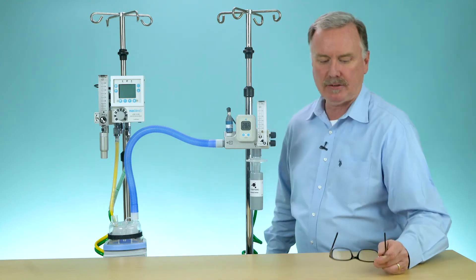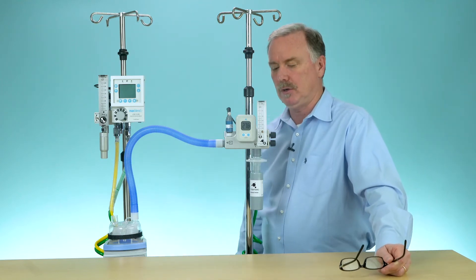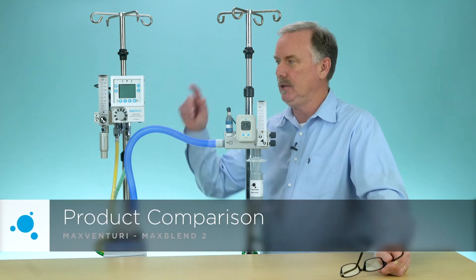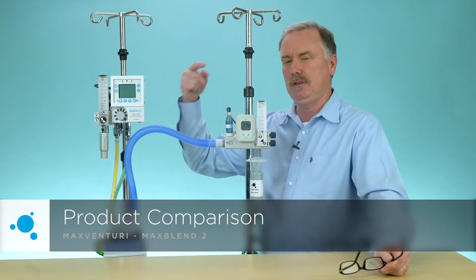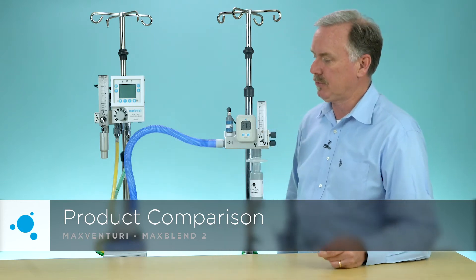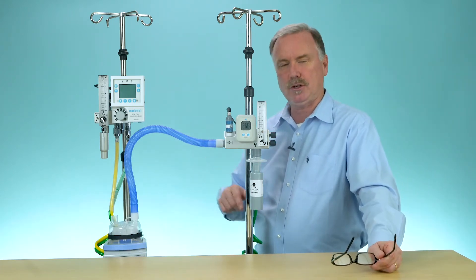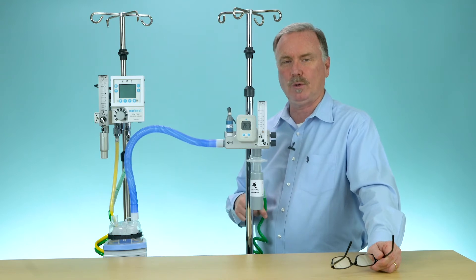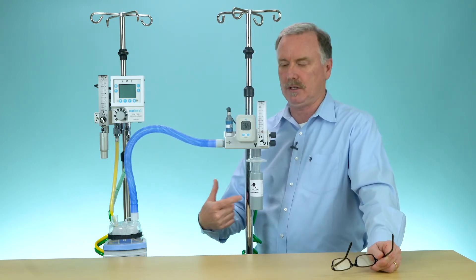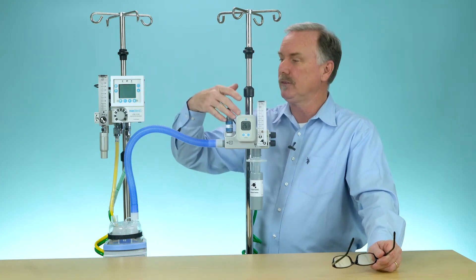Hello, this is Brian from Max Tech, and this is another Minute with Max Tech. Today I want to talk about the primary differences between the Max Blend 2 and the Max Venturi when trying to deliver high flow to your patient. The most obvious difference is that the Max Venturi only requires one gas source — an oxygen gas source — and then entrains room air to get you a prescribed amount of blended gas.